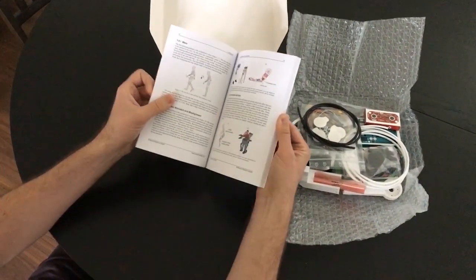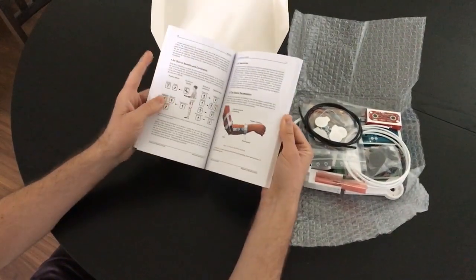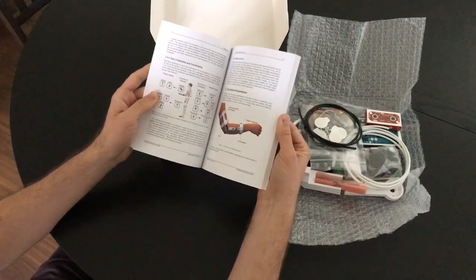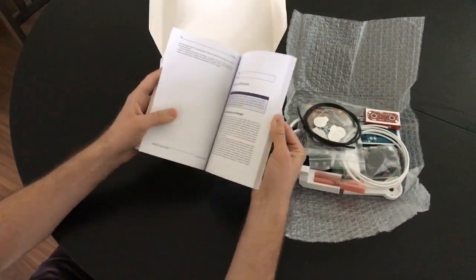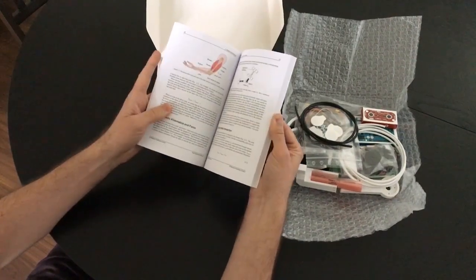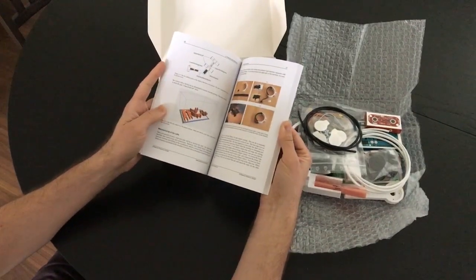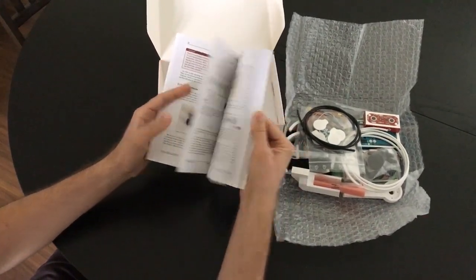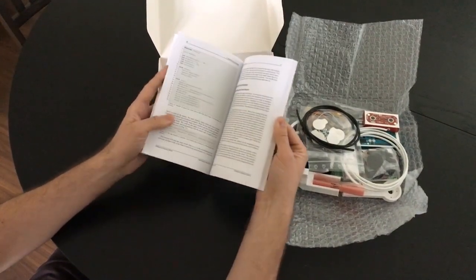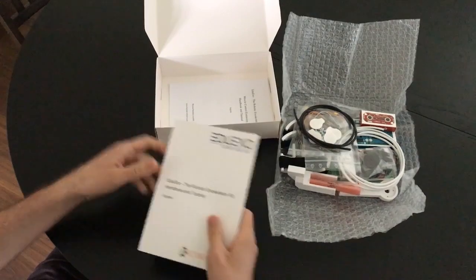So if you want to learn more about this, or if you're in a class environment where you want to educate people, this is an excellent resource in addition to everything else that you're already getting. Afterwards it goes into the mechanics and the theory of exoskeletons, how it was made, and how to use it and set it up. So this is an excellent resource guide in addition to the hands-on exercises that you're getting inside the kit.